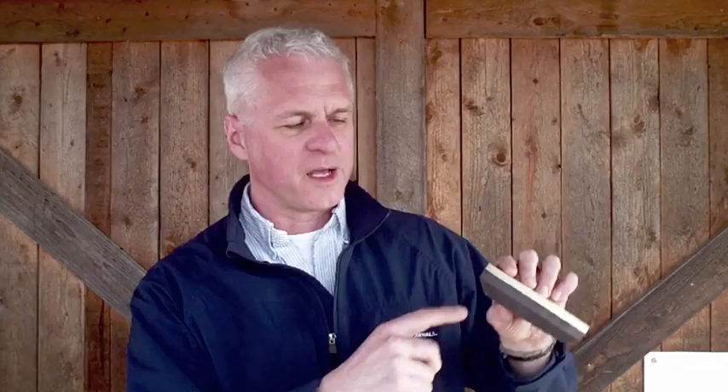Hi, I'm Dr. Mike Pownall of the Key Pownall Equine Services. Today we're going to talk about a new approach to treating laminitis using a wooden clog. We like to use a clog because it has a very beveled edge on all sides, which allows a painful laminitic horse to move its feet in either direction without much impact, restriction, or tearing of the lamina.